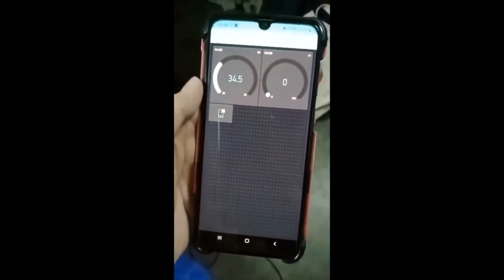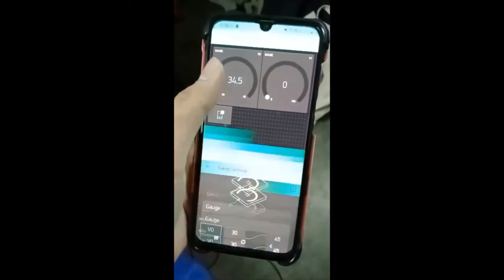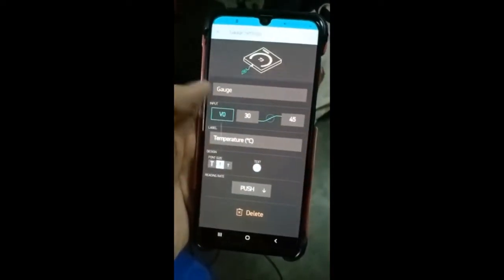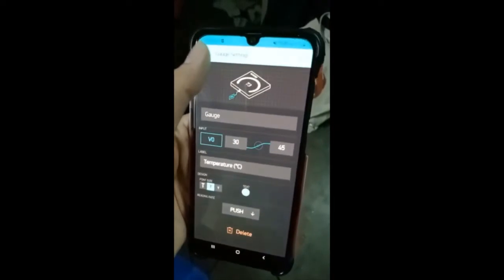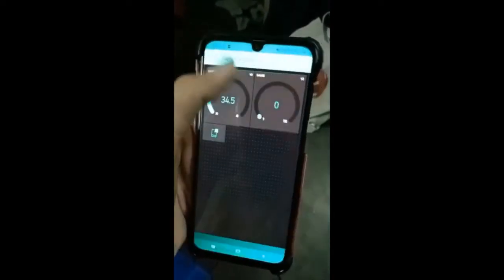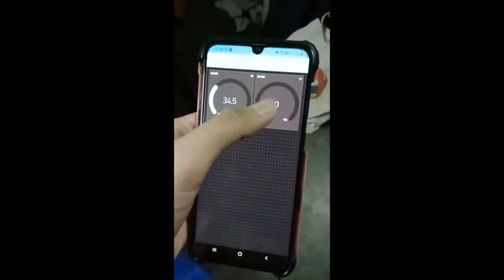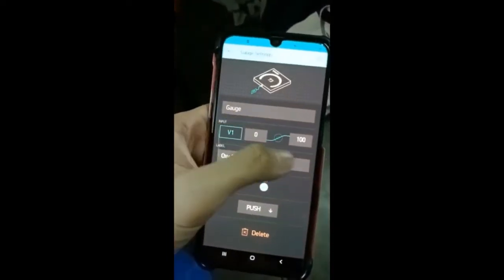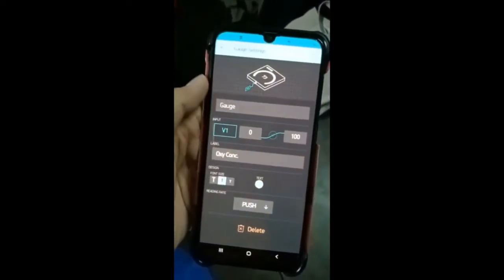This is to display temperature value. We set the range of body temperature from 30 to 45 degrees Celsius. This is to display oxygen concentration value. We set the range from 0 to 100%.